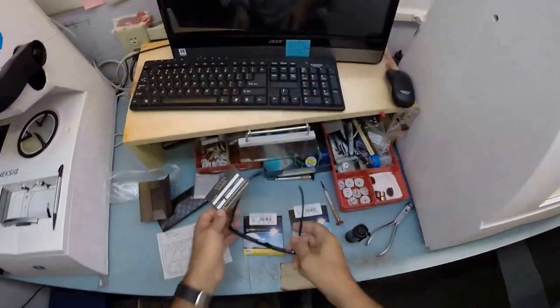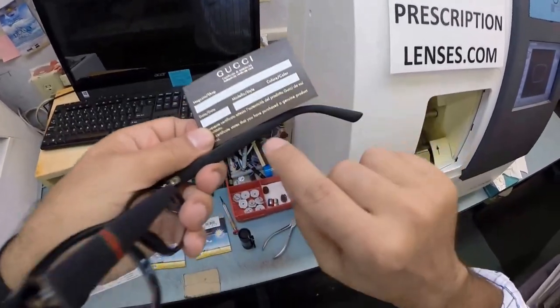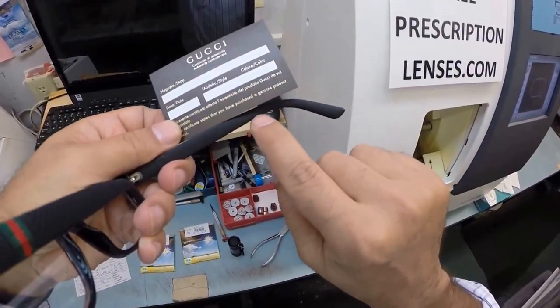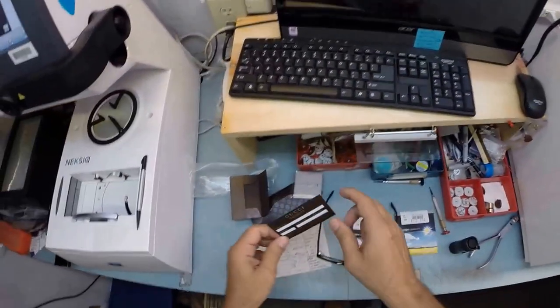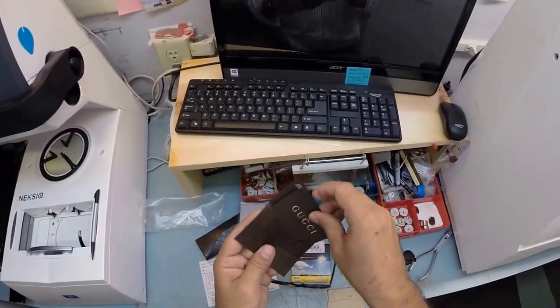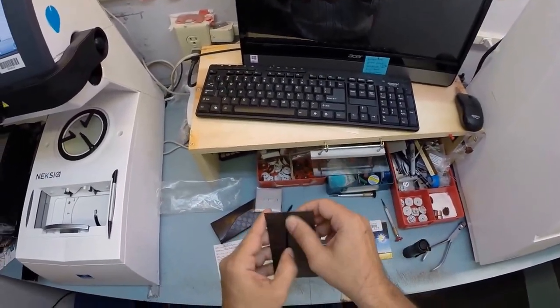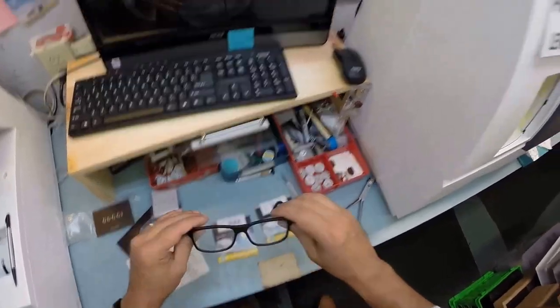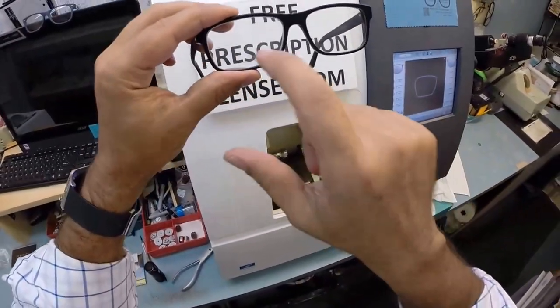This is where you would write down the model number, which is on the serial number on the inside of the temple, which is hard for you to see here, but you'll be able to see it when you get these in the mail. I'm going to put everything back in here and I'll show you the rest of your accoutrements in just a moment.